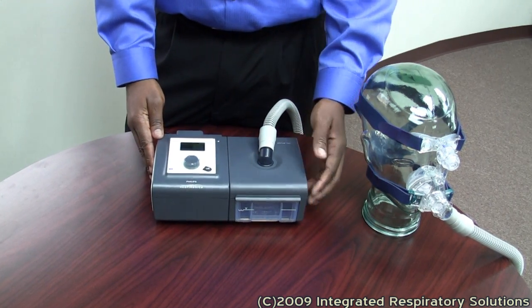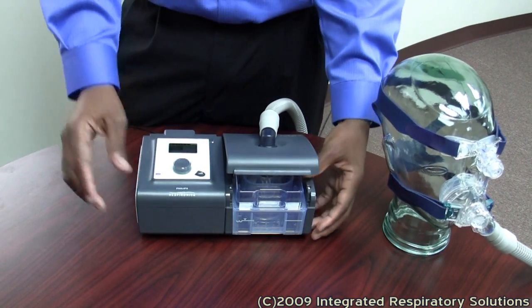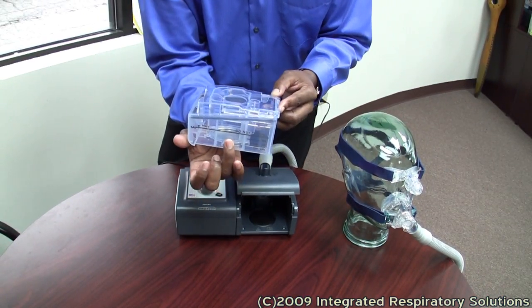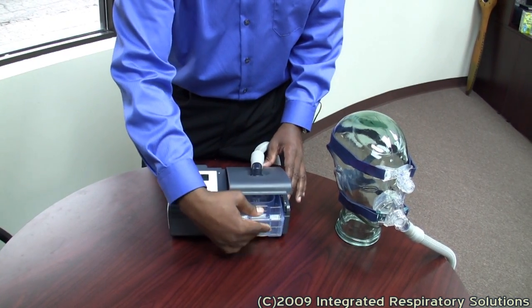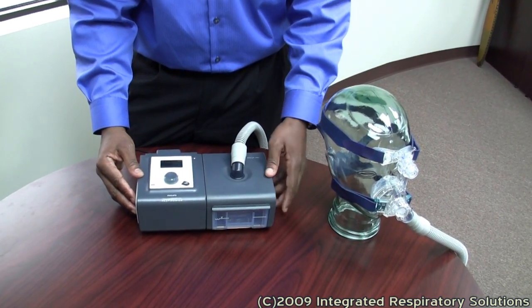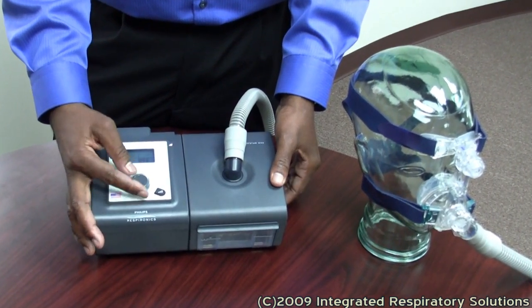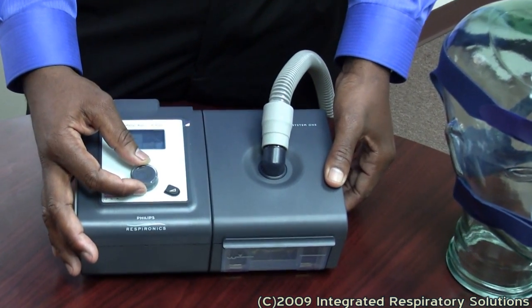Humidity — your humidifier chamber. You will fill this chamber up to that line with distilled water. The purpose of the humidifier is to prevent dryness while you sleep, which is very common with CPAP therapy. You can control the level of moisture by simply turning the humidifier dial. The higher you turn the dial, the more moist the air is.